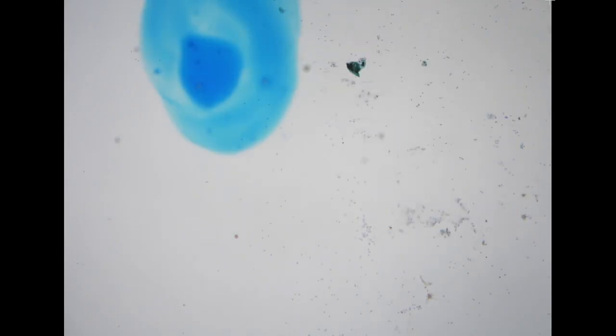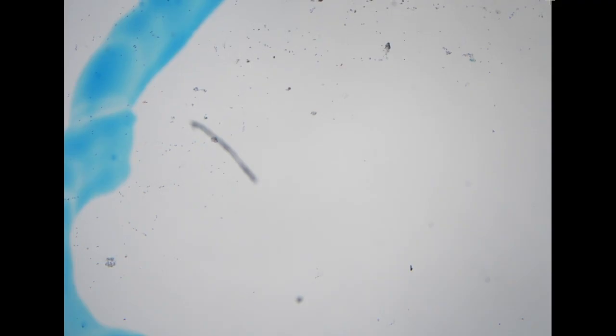The next specimen is an uncommon specimen. It's a specimen from the eye. So we have a younger attending doctor from the Department of Ophthalmology who learned ocular oncology from the States and, coming back, keeps asking us to make specific diagnoses on very limited specimens.